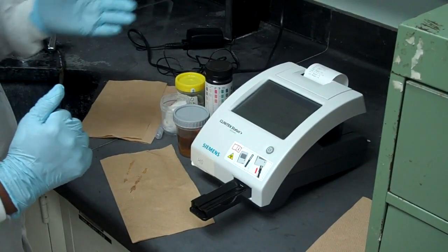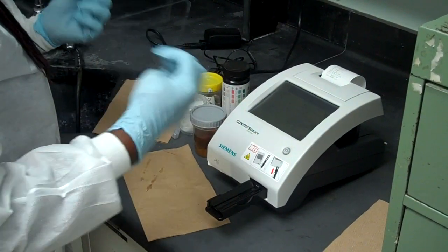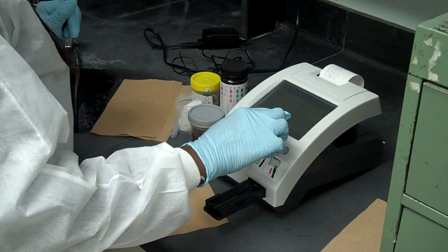So now that has happened. The next thing we're going to press is done. You press done before you take off your gloves. So that you don't contaminate the surface.